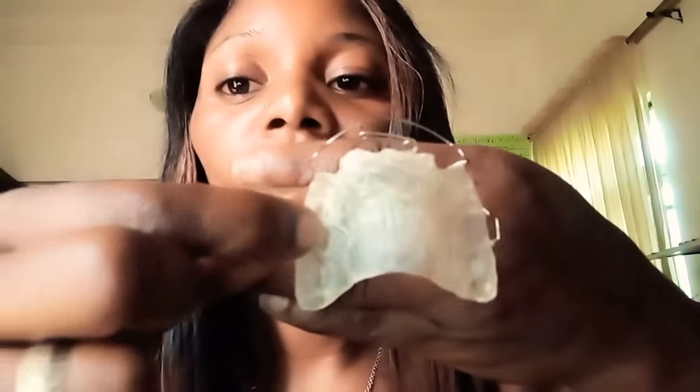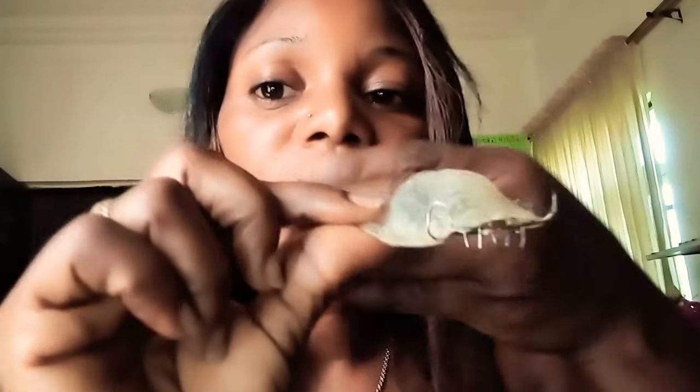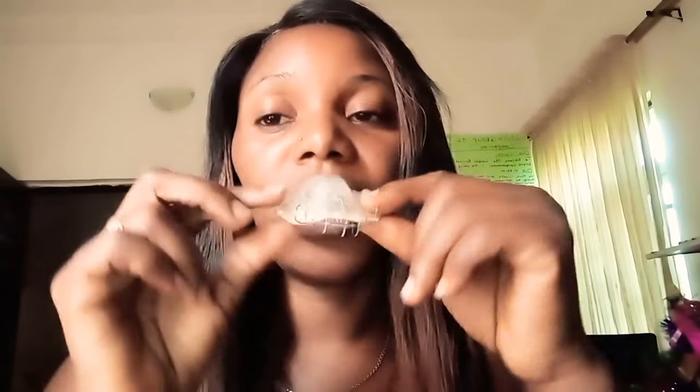Now this is my tongue rake, guys. This one is so very easy. I had this before and I misplaced it so he gave me another one. This one is actually a retainer — if you see the way it is, it's a retainer and a tongue rake combined. It's not kind of difficult to wear this one — I just put it like this. This one is so very easy to wear, it doesn't have issues.